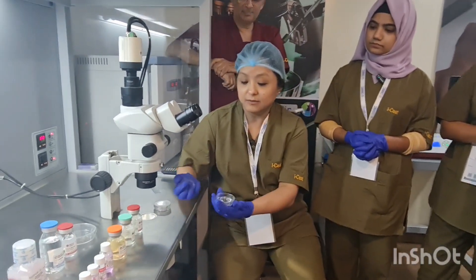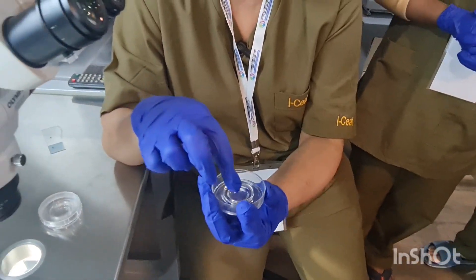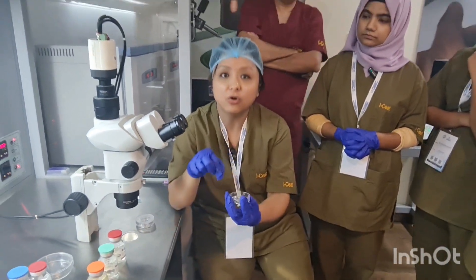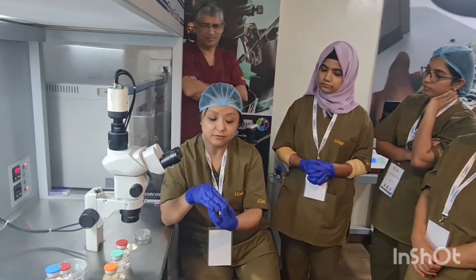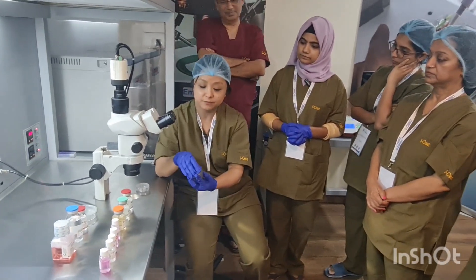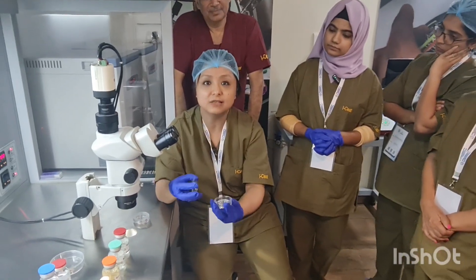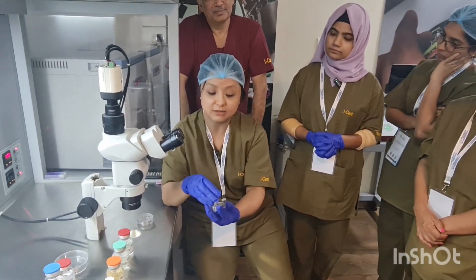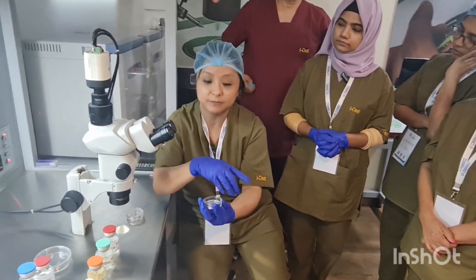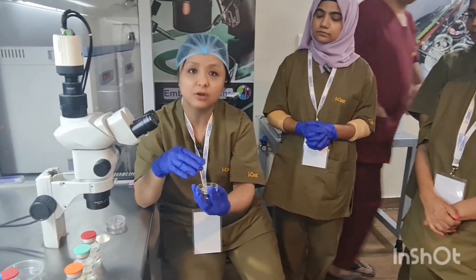Around 3.5 to 4 ml of media will be used for culture. As I am showing here in a single well, 0.5 ml of media can be kept inside the well. We have to overlay the media with paraffin oil so that the CO2 which we have charged won't escape out. Everything has to be done faster so that the CO2 is not leaked out. The advantages of paraffin oil are: maintaining temperature, prevention of CO2 leakage, and protection from infections.